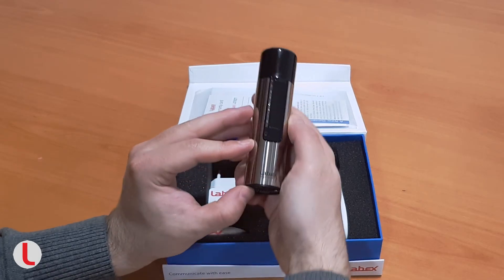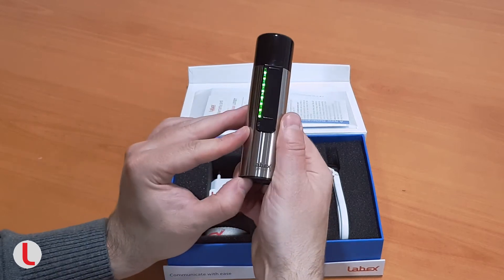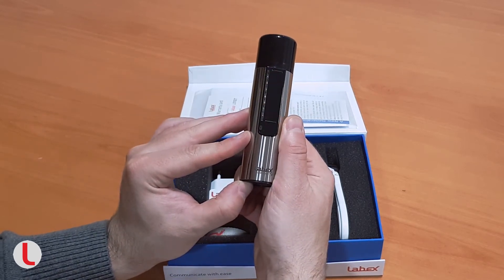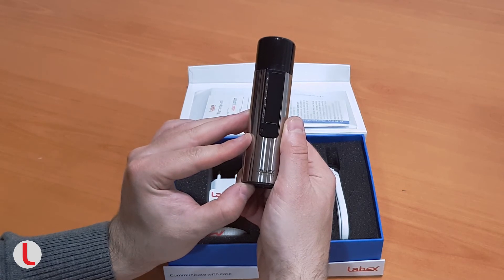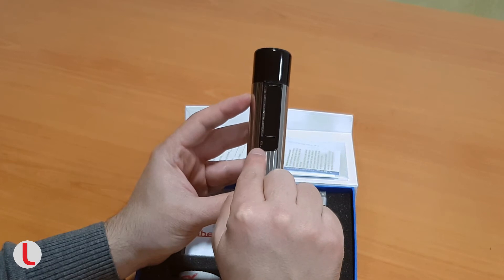Release the settings button to confirm the desired volume. You can check the battery discharge level. If all eight LED lights are on, then the battery is fully charged. If less than two are on, the battery is about to run out and has to be recharged soon. A red light at the bottom of the slider will turn on.